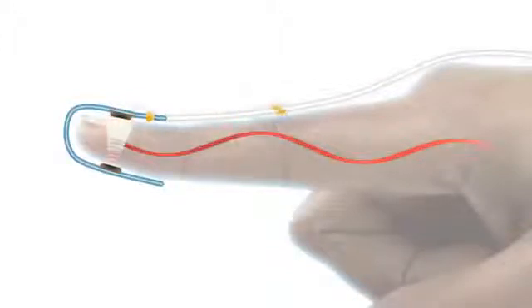Nonin sensors have an emitter that projects a tuned light-wave pattern through the arterial blood and a detector which receives that light. Changes in the light-wave spectrum during pulsation of blood generate a measure of blood oxygenation and pulse rate, which is sent to the pulse oximeter.